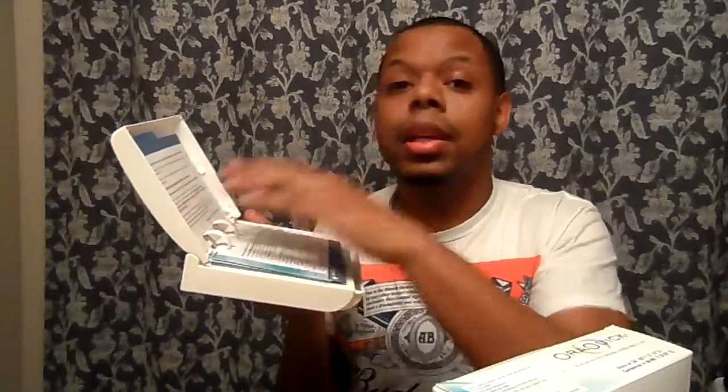It comes with these little tabs, and the first two tabs say this is gonna require some concentration. So if you're nervous and you think you might have something, you might want to sit down, have a friend do it, or just go to the doctor. But I said, this cost $40 so I'm gonna sit my ass down and come back.